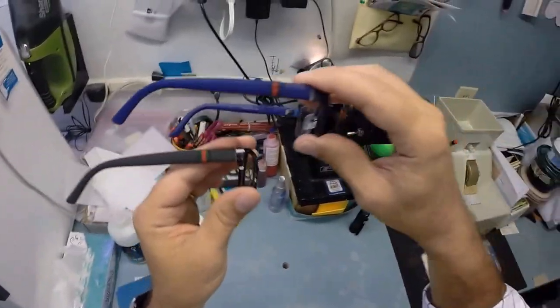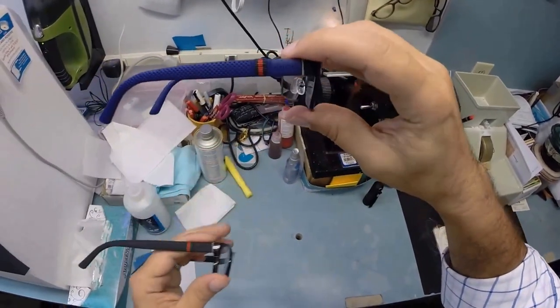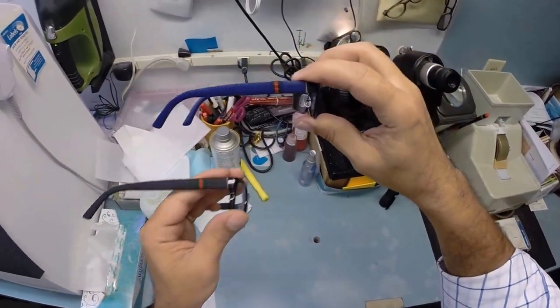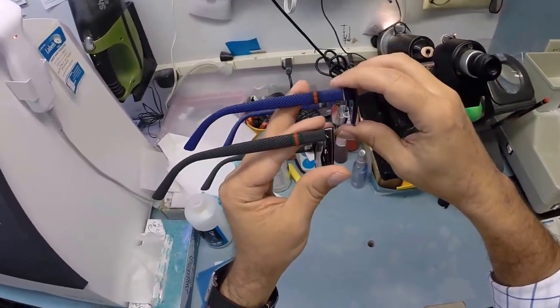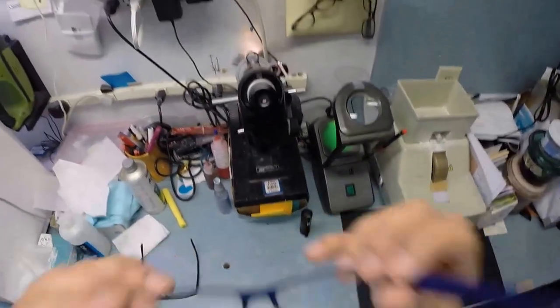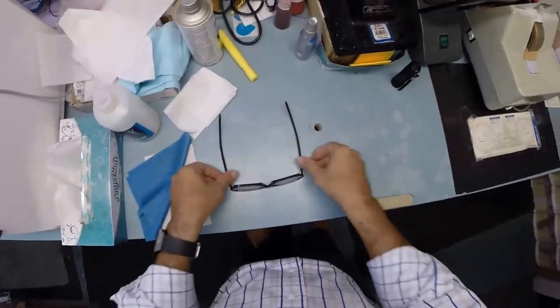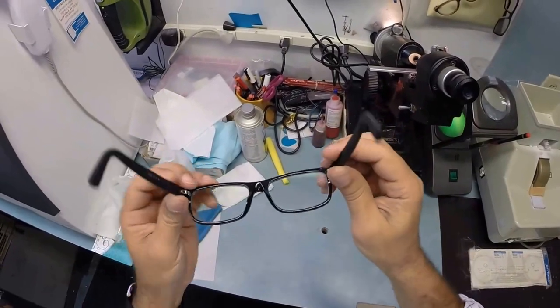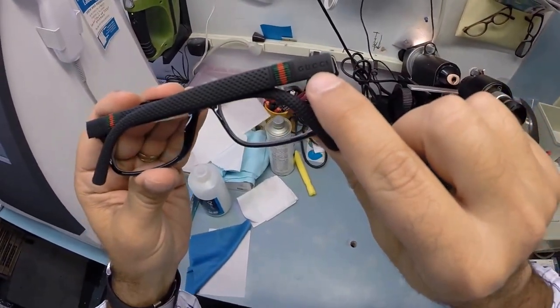I have a metal front with nose pads. You have the plastic front with no nose pads. But we have the same temple. You have the black rubber with the red-green. I have the blue rubber with... Is that black? I can't see without my glasses on. Dark blue and red or black and red, I'm not sure. But it is pretty cool how we have the same rubberized temple. Let me put mine back on so I can see what I'm doing, yo. So I flip it over, press down. There is no wobble. I close each temple to make sure they overlap perfectly. And they do.